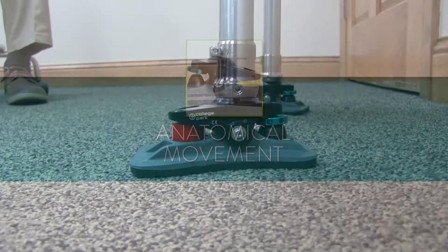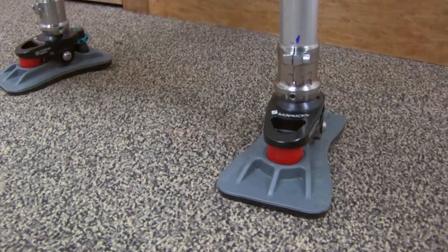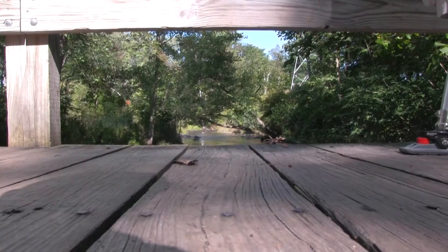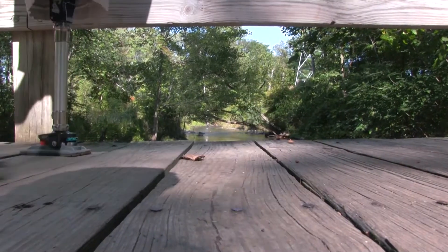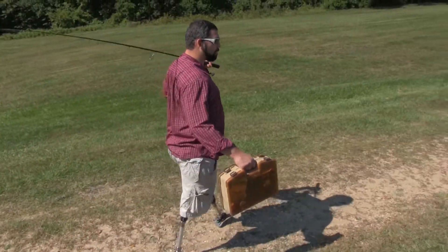College Park Designs are renowned for natural ankle movement and function. The Sidekicks utilize the long-established Venture Ankle technology that allows multi-axial movement on all three planes of motion. Anatomical ankle motion increases muscle activity for better balance, assisting in the rehabilitation process and potentially helping with the transition to microprocessor knees.